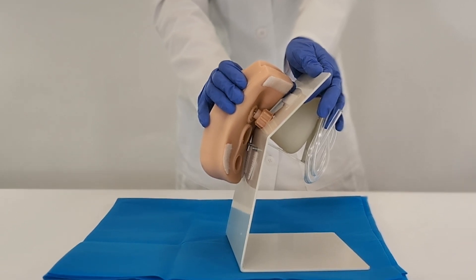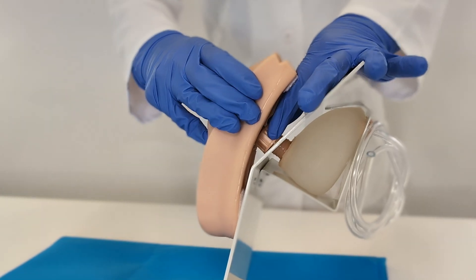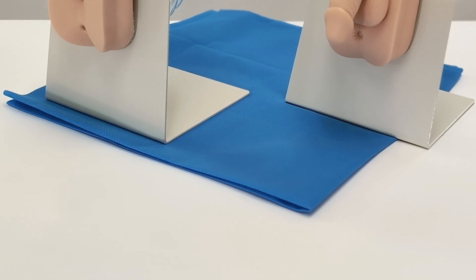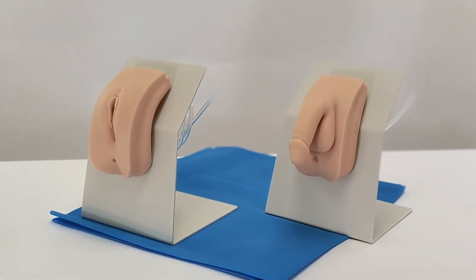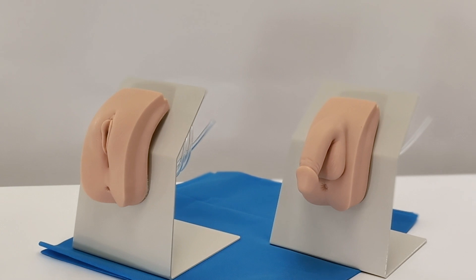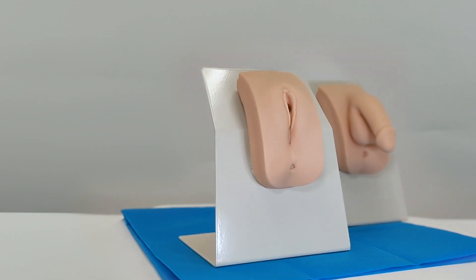Its robust, detachable metal base ensures stability and convenience during training sessions, while the included absorbent pad and catheterization tubes provide students with all necessary tools to begin training.